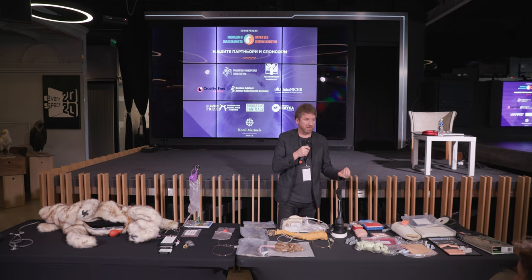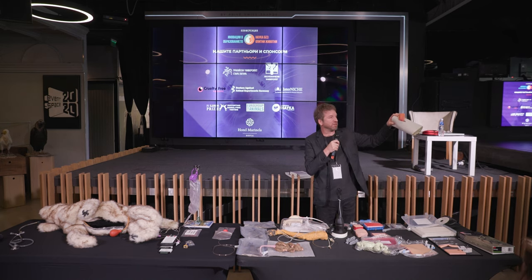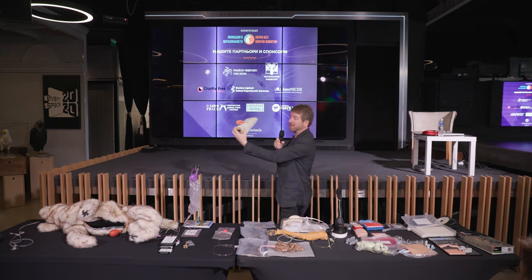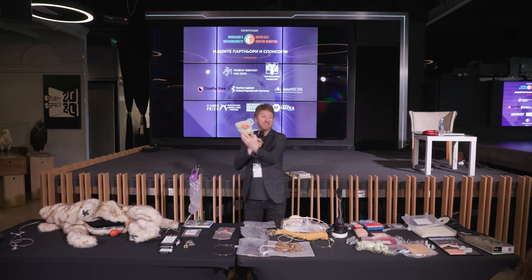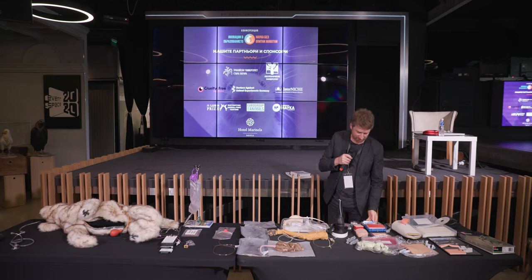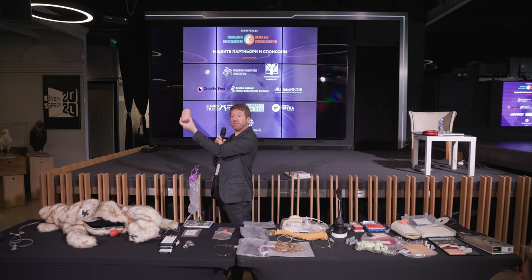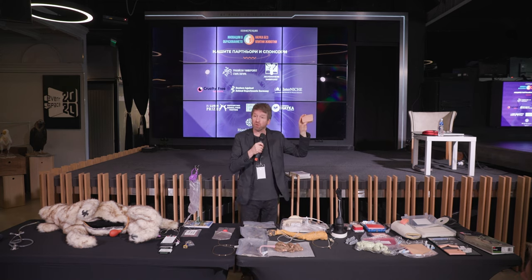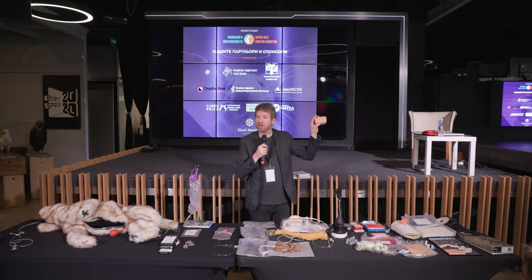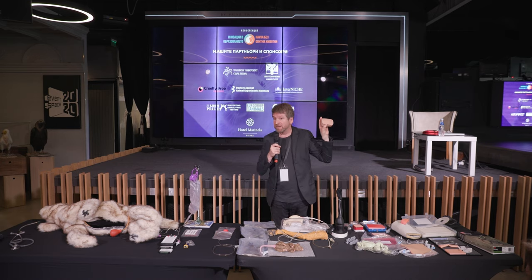You can be mentored in your skills lab and be very well prepared. Then there are particular processes and procedures you can practice. This is Daisy — for you to practice intestinal anastomosis. Simple model, but sufficient for that level. Later on, of course, you can work with more complex models. This is the insert for one of the spay-neuter models. You can practice those procedures before working with real patients and going to do shelter medicine and helping animals whilst also learning under supervision, working first on the non-animal model so that the patient is not facing any risk.